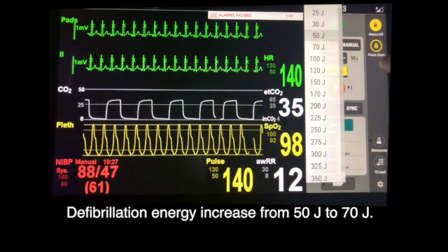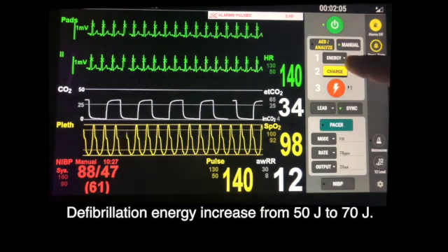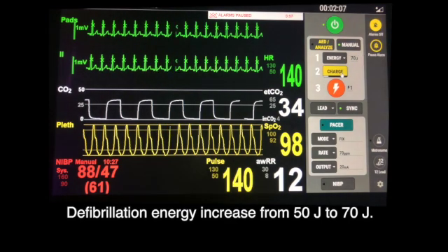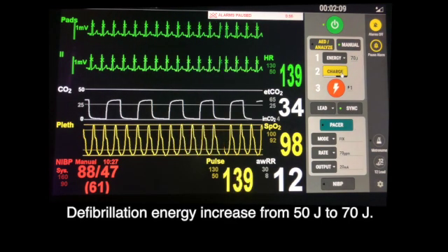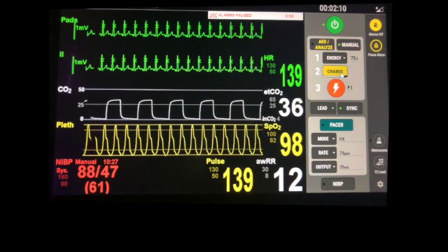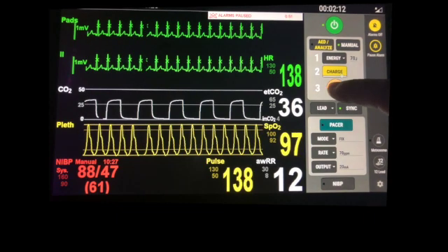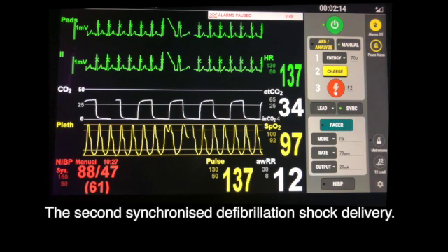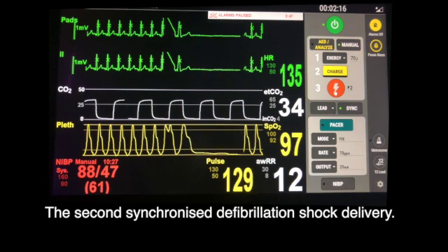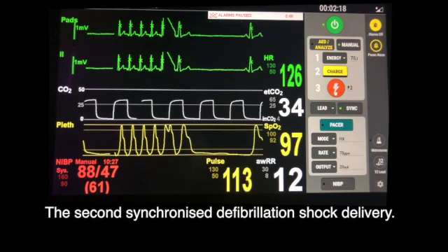Defibrillation energy is increased from 50 joules to 70 joules, and the second synchronized defibrillation shock is delivered.